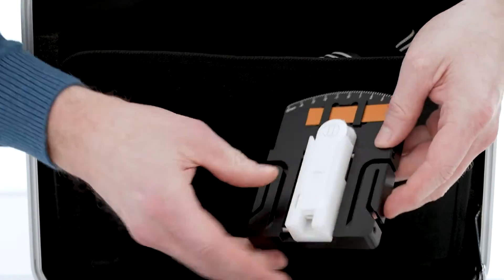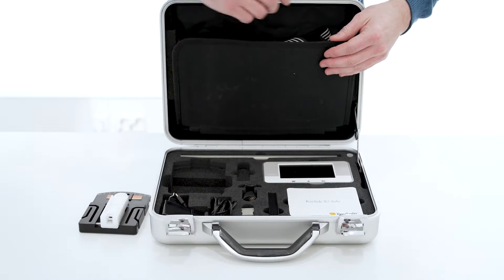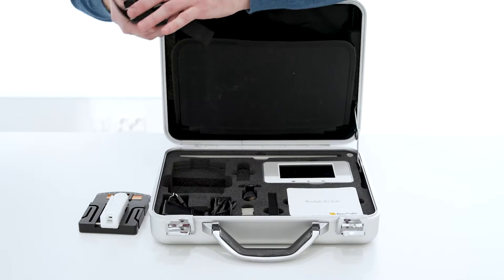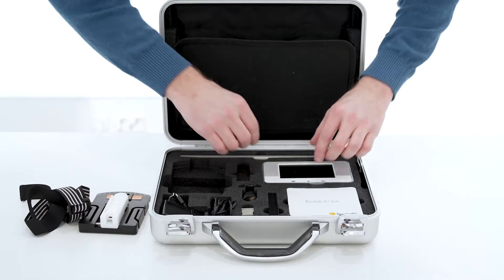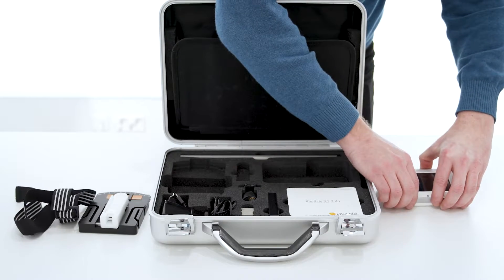You need a dent sensor and a panoramic holder with its strap, plus a radiochromic film. You also need a base unit and a USB cable to connect the sensor to the base unit.